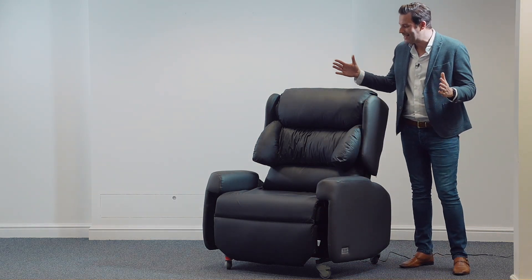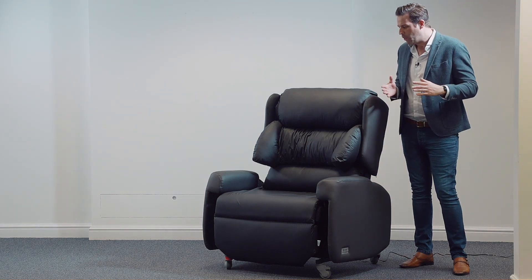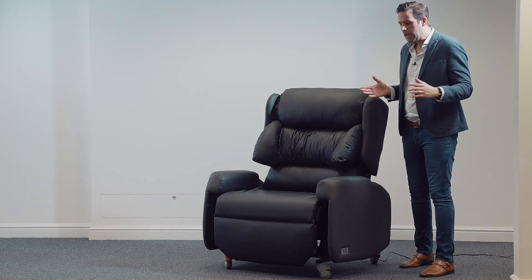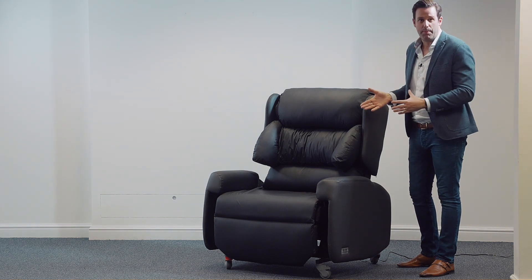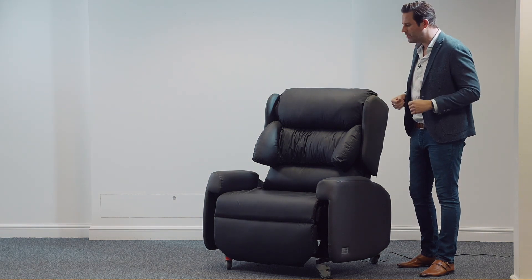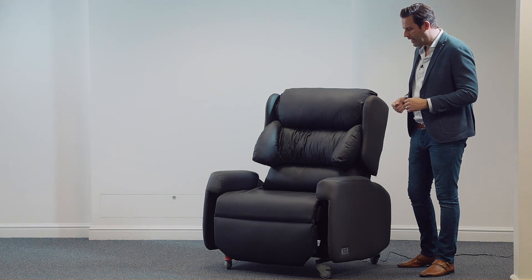What we're eventually at is 32 inches in width, which should really accommodate any bariatric patient here in the UK capable of coming into and out of a rise and recline chair.